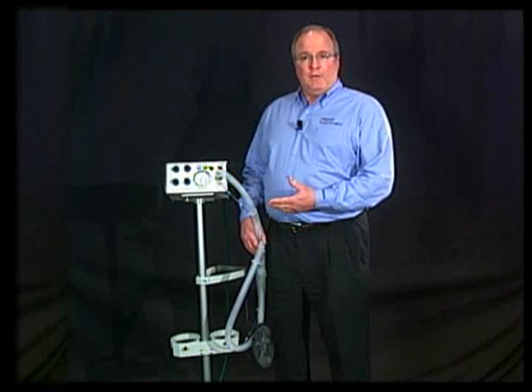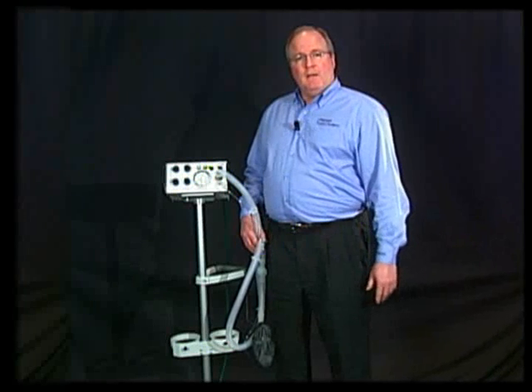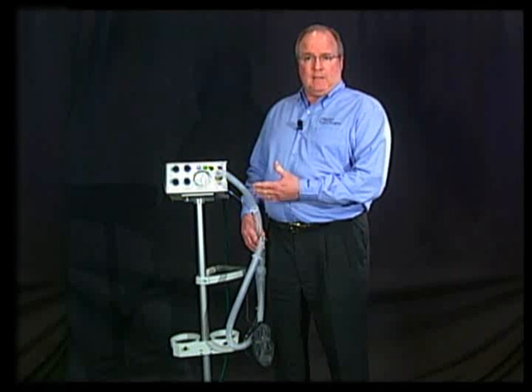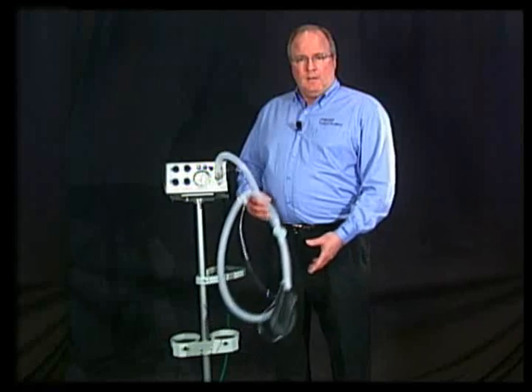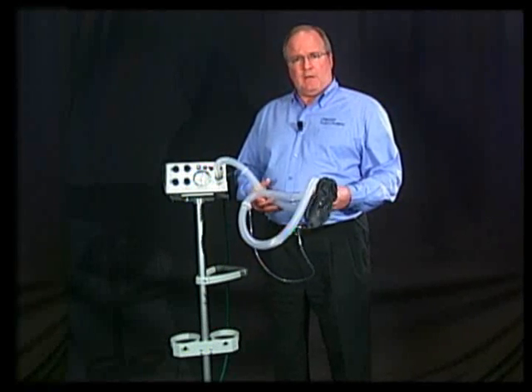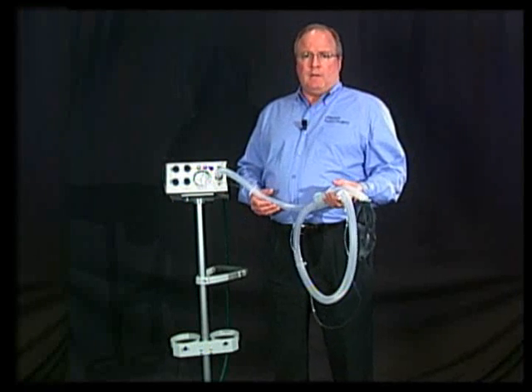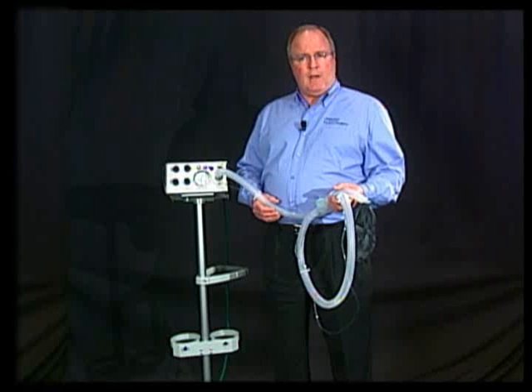The Newton sits on an MRI-compatible stand that holds two E oxygen cylinders. The ventilator slides easily in and out and locks in place. This is the patient circuit — a single-limb circuit with expiratory valve that connects to the front of the ventilator. The clinician may use an ET tube or face mask with angle connector.